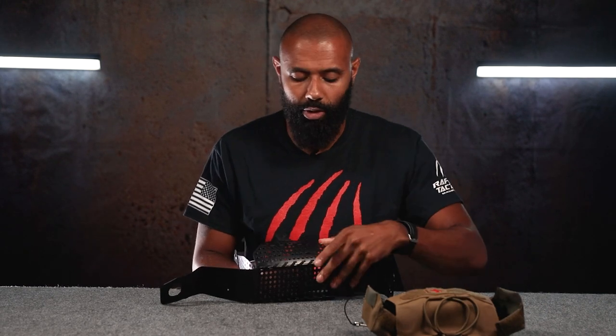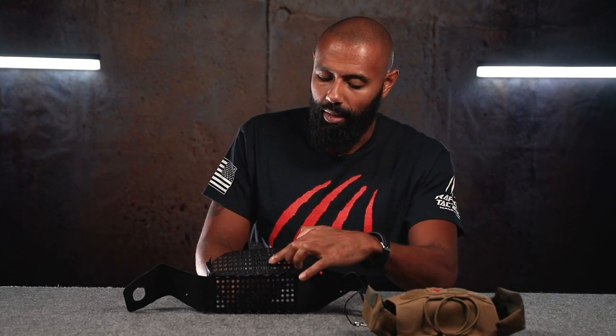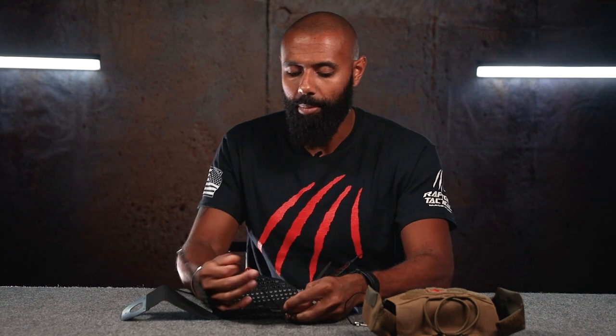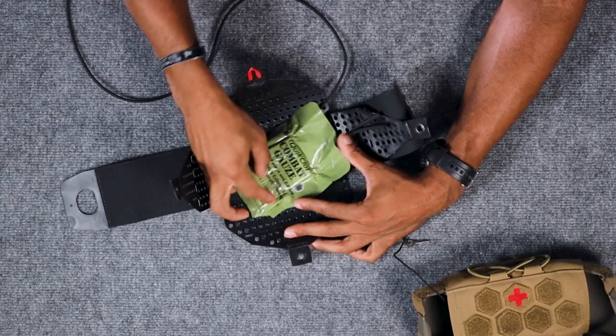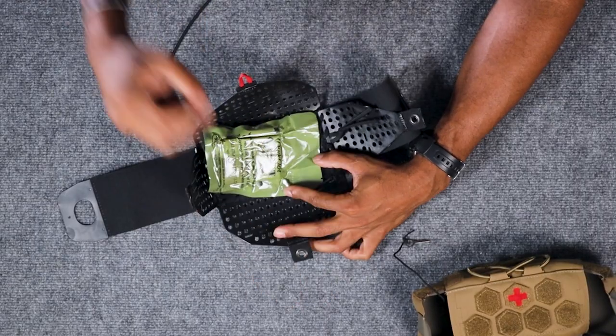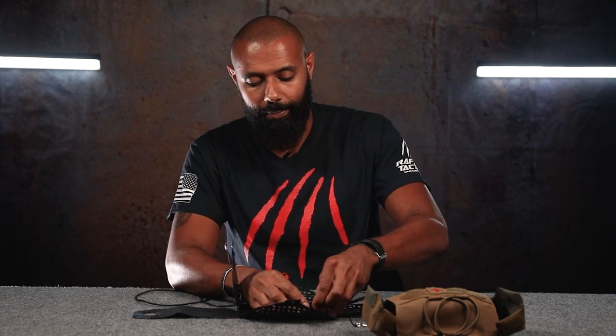You can see it's kind of looped around on the outside, but the knot is on the inside, and then the rest of the loop is over here. I could loop this wherever I need it to be, then put my gauze in here, wrap it up, and just make sure everything is secured so it's not going to shift around when it's in the pouch. Everything stays in place the way I want it set up — I've got gauze here, I've got some quick clot here, I've got whatever else I might need.